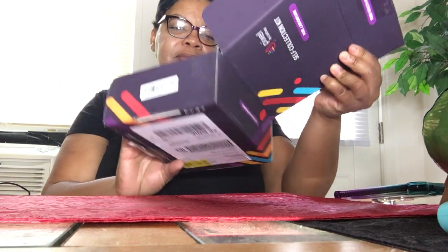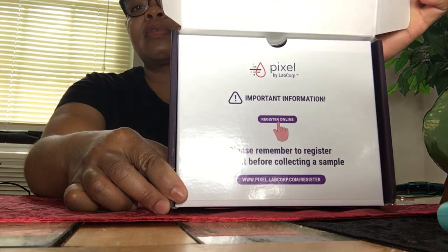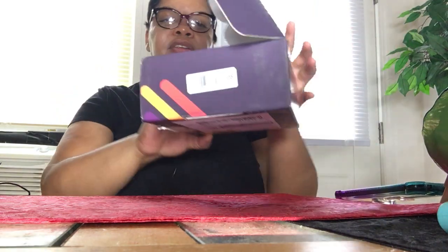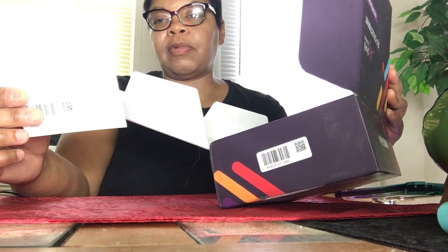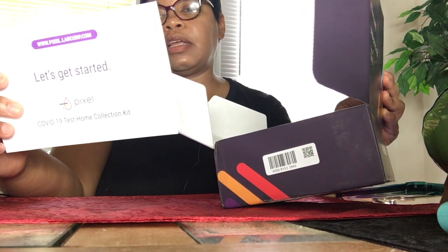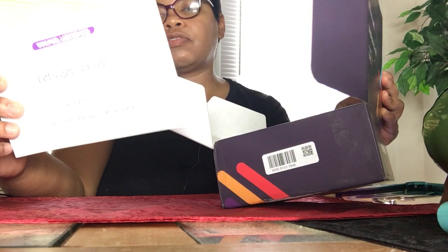It's Pixel by LabCorp. Like I said, I had never known they did this — they do a lot of other home kits. And it says I have to register the kit; the sample will not be processed until it is registered. The kit includes one collection tube, one swab — really, that's it, I thought it would be two — and a biohazard specimen bag, the box to return it in, a registration card, and a FedEx return pack.